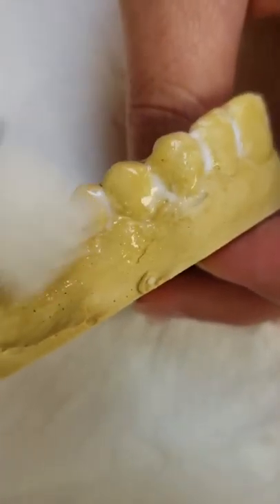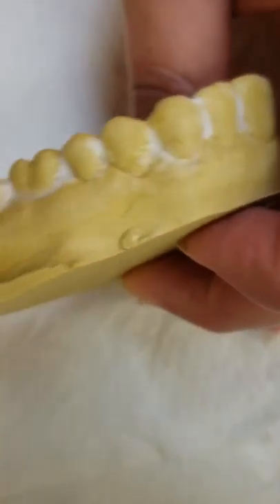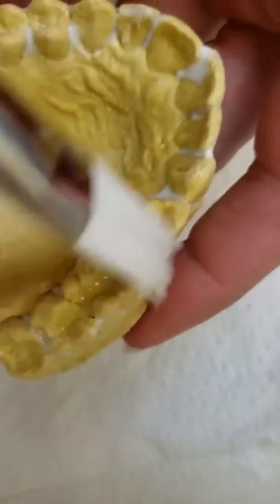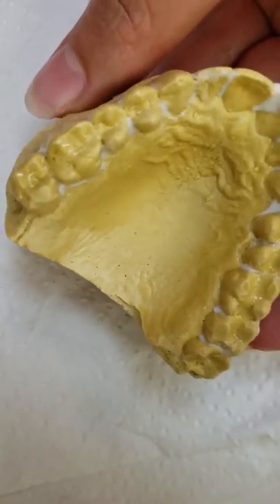If the liquid foil is too thick, you'll actually get separation in your tray against the model. It does need to be absorbed, but you also want to make sure you can see it. Check that it's nice and shiny, then thin it out a little bit on the occlusal surfaces — and then that part's ready.